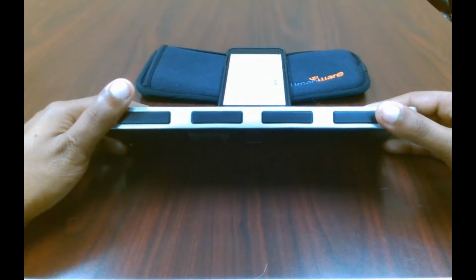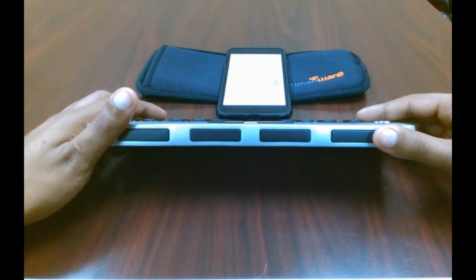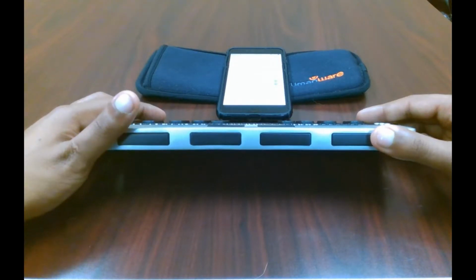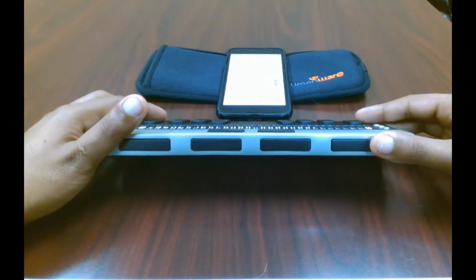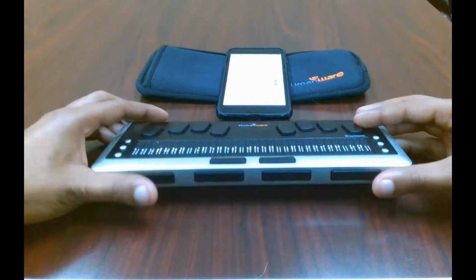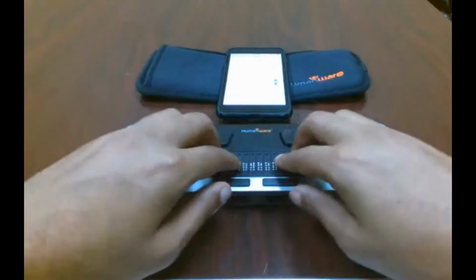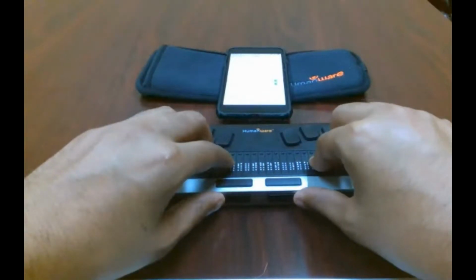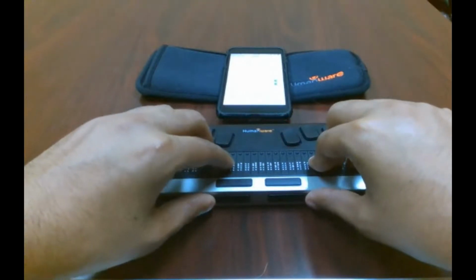Button. So these thumb keys work kind of differently, so let's go ahead and find a longer piece of text that won't fit on one line of 32 Braille cells. Status cells. Equations use English code. Show on screen keyboard. Off. Turn pages when panning. On. While reading content, panning to the end of content will automatically turn the page. Double tap to toggle setting. So as you heard, that was a really long thing, and that does not all show up on the Braille display.